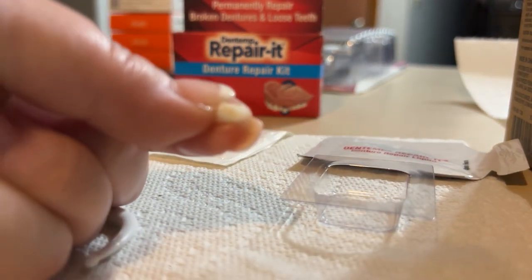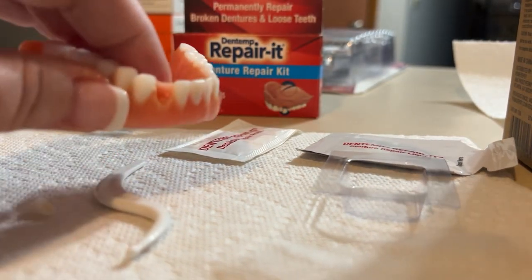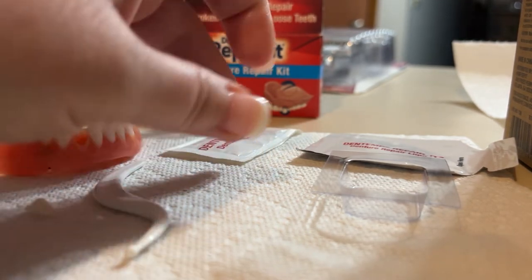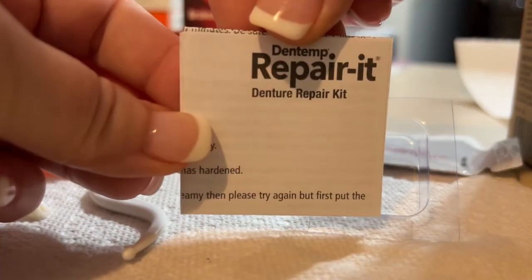I make soap and I keep giant bottles of alcohol to sanitize equipment and packaging, so that's what's in my house. I've got that sprayed down, fingers are clean — I washed my hands while I was off camera. I'm going to wipe this up with a clean paper towel because this started off sanitary, but we don't know who had their mitts on it before it went in the box. Sanitize everything because this is going into your mouth later. We are not going to do anything to the main denture — nothing, absolutely nothing.